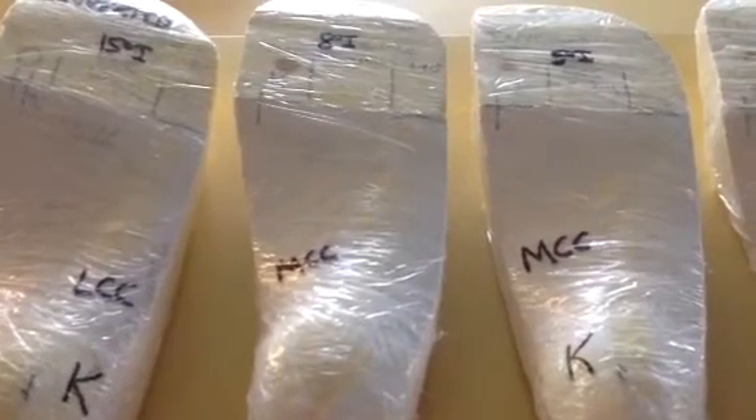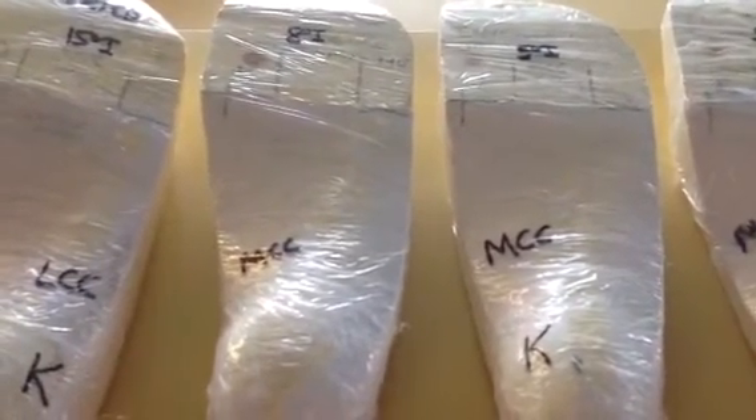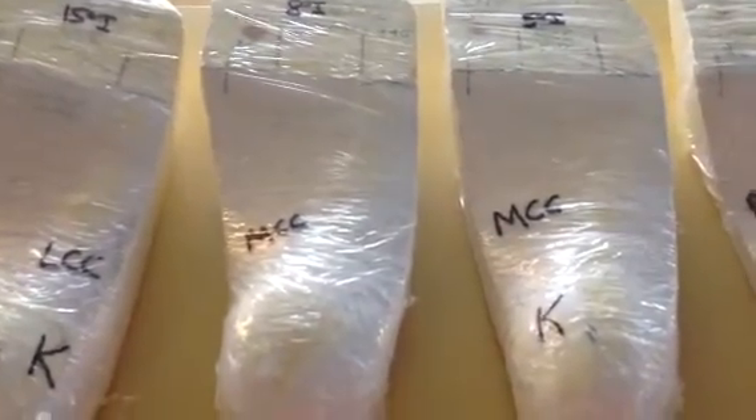The next one is a modification poured at eight degrees. It's typically used for patients who have forefoot varus over about ten degrees. You pour them inverted and sort of ignore the forefoot varus when supporting. You can still see there's forefoot varus support in this, and then we added a medial column correction.